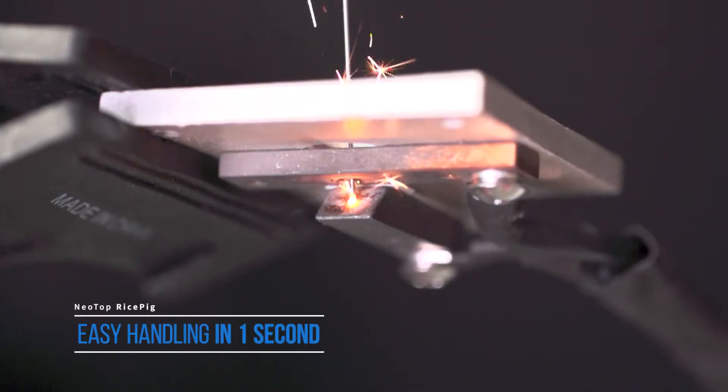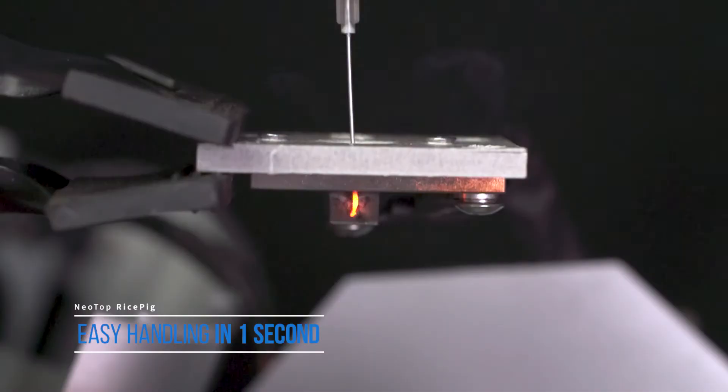With RicePig, syringe needles of various sizes can be easily processed within a second.